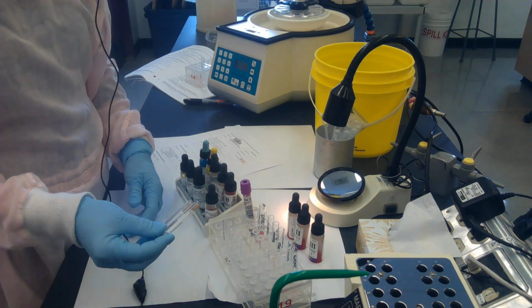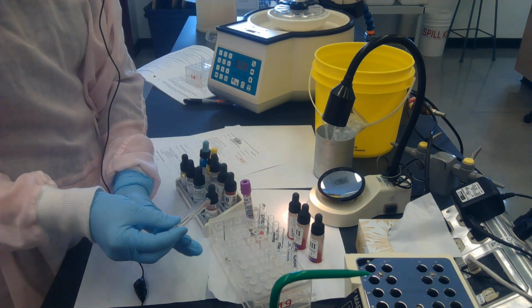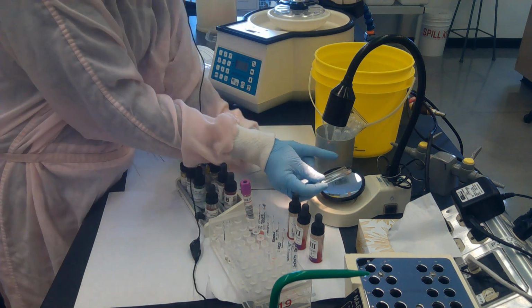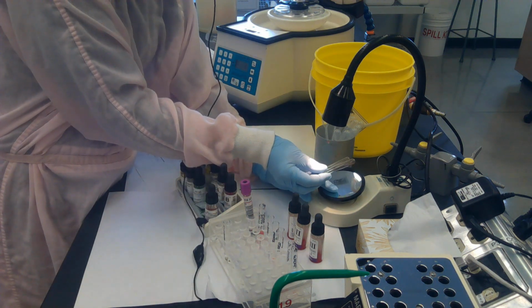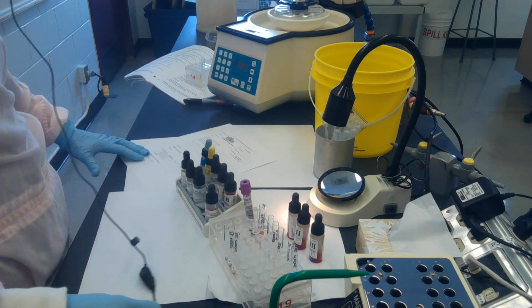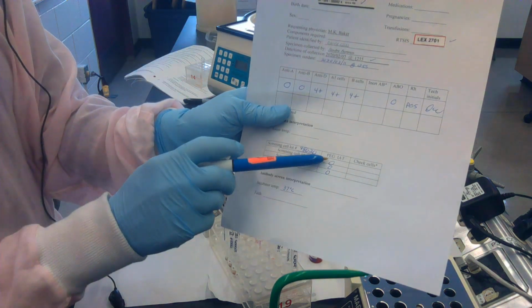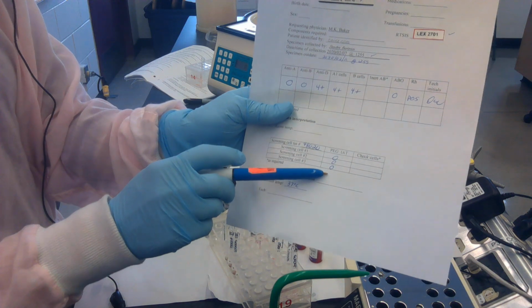So what I'm going to do is just tilt the tube so that the liquid is floating along the bottom of the tubes, and then hold them over my agglutination mirror, and I'm looking at the image in the mirror. And I don't see any agglutination, so I'm going to write that down on my requisition, that in PEG at IAT, I didn't see any reactions.